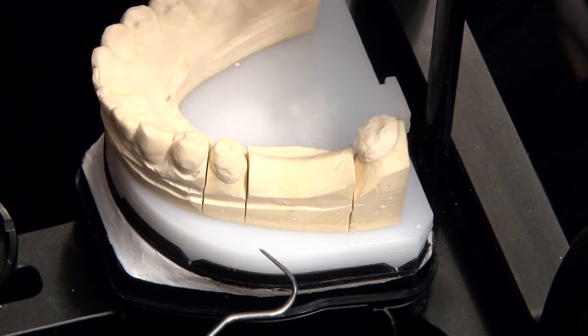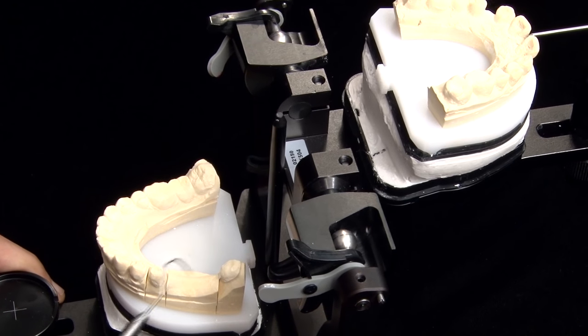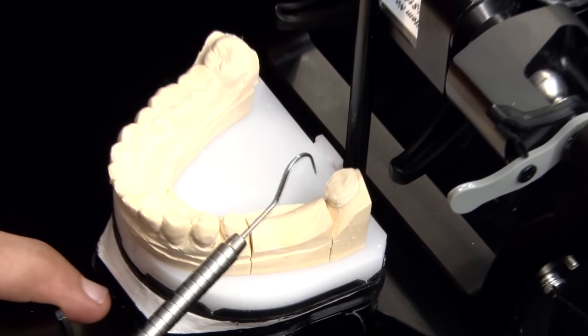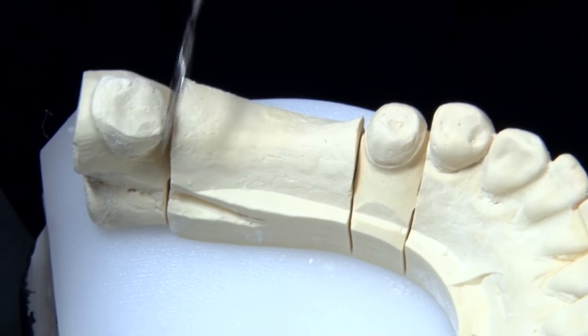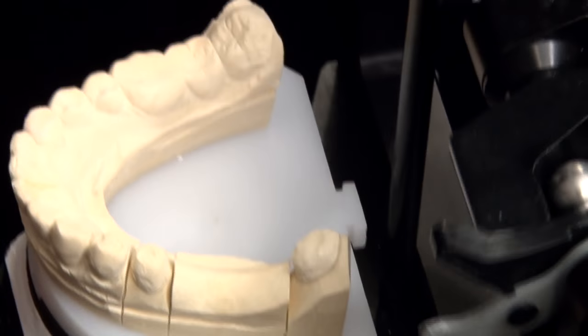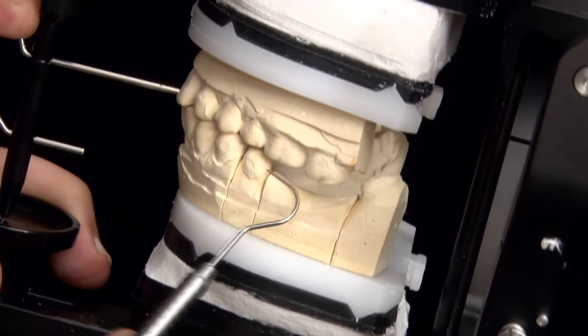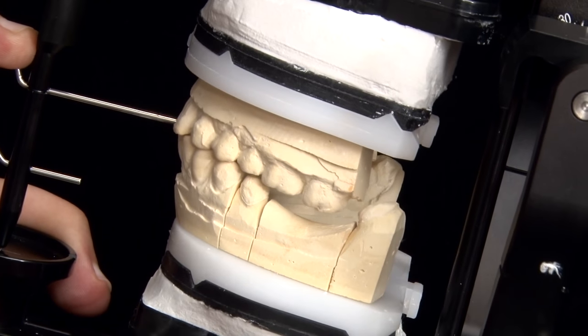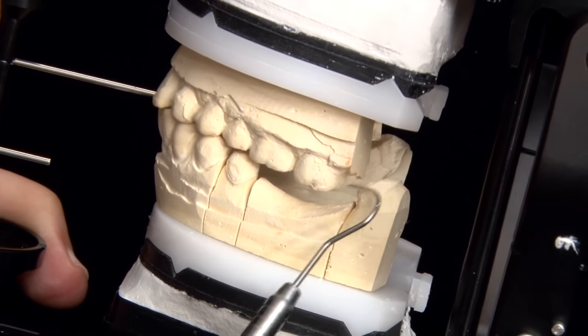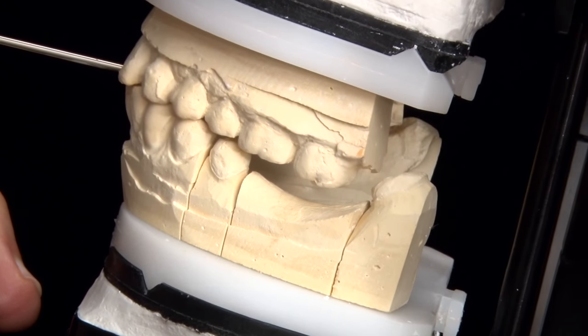Let's have a look at the preps first. The preps seem just about okay. These are mostly knife-edged margins all throughout, so nothing substantial to notice there. There are a few undercuts on the lingual aspect of the 3.8 and also on the lingual aspect of the 3.5. Let's check the occlusal clearance now. The occlusal clearance over the 3.5 seems just about okay for a Zirconia bridge. Occlusal clearance really does not come into play in the 3.8 because the opposite tooth is absent.